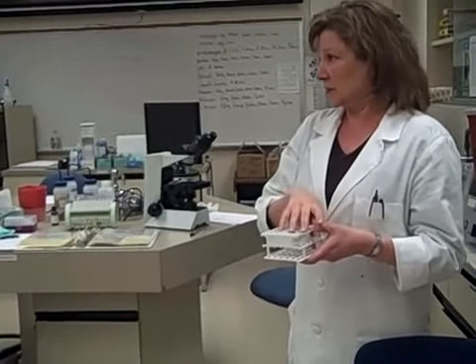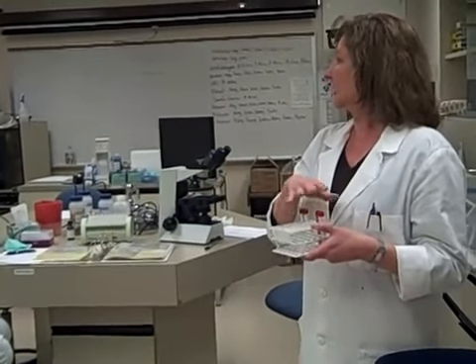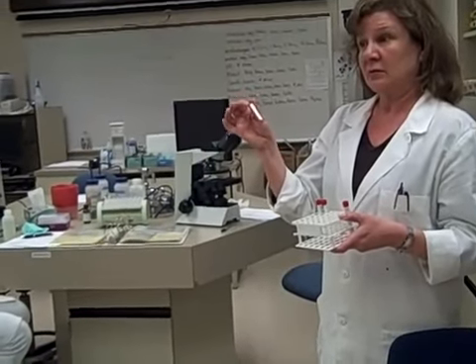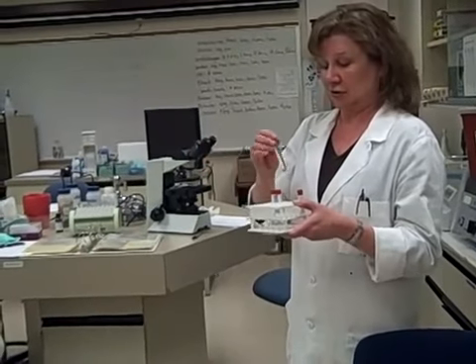When you count them on the hemocytometer, you're going to use the same universal formula, but this time you need to distinguish between the white cells and the red cells. Since we don't want to lyse our red cells, you're not going to be using acetic acid or the Unopette. You're going to be plating it straight, so you won't have a dilution factor. With the red cell specimen, you might want to consider using the smaller squares — the red cell squares in the center portion — and multiplying by 250 instead of the larger squares times 10.